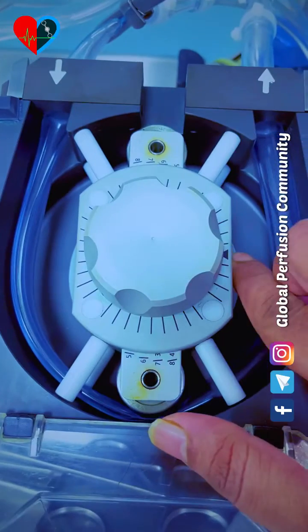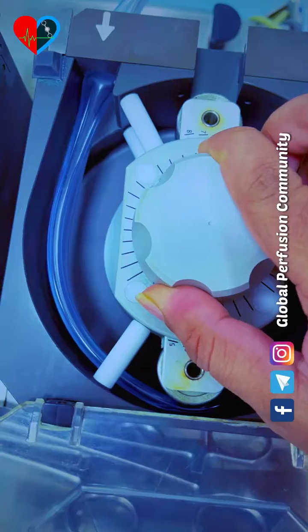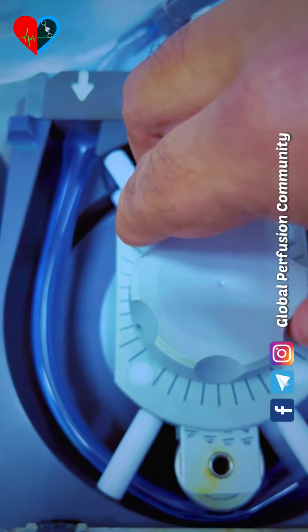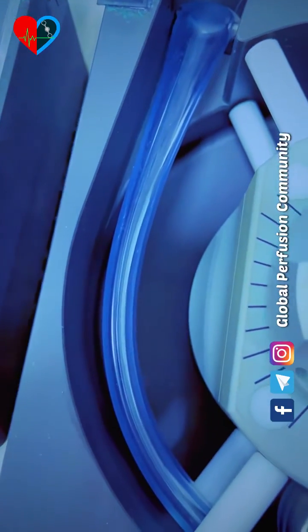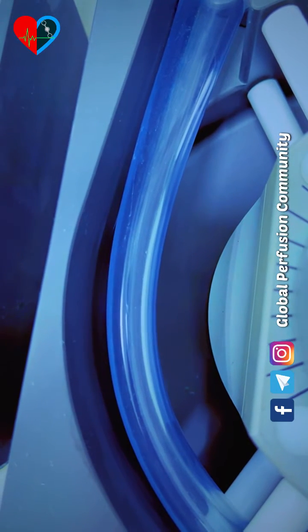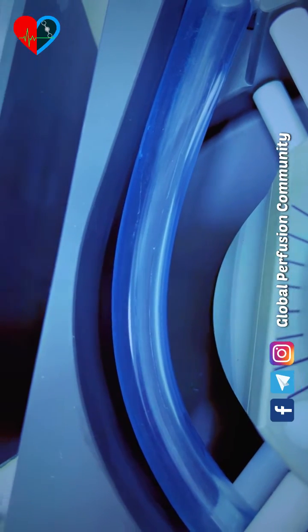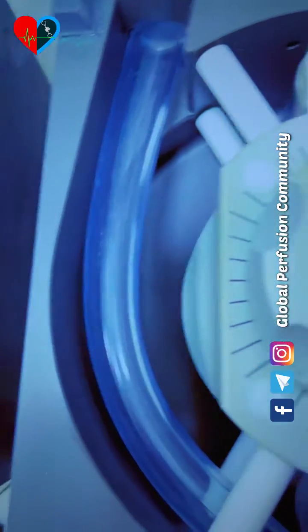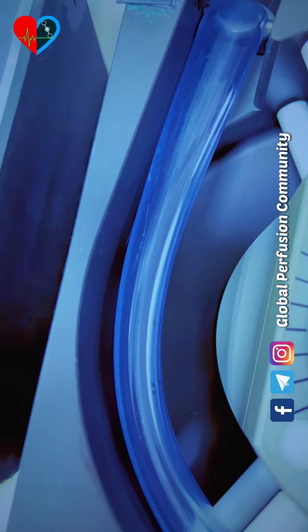Open the lock and slowly try to loosen the occlusion by slowly rotating the knob. As you can see, the tube starts decompressing — it comes back to its original size. You can see it slowly coming to the original size, and the tube is now expanding. Again, close the knob.